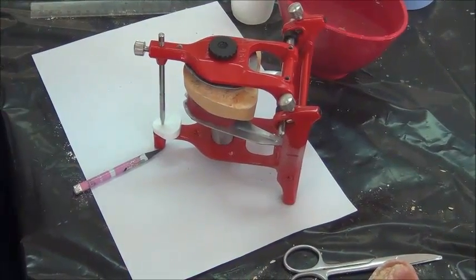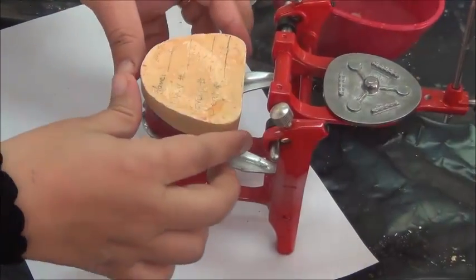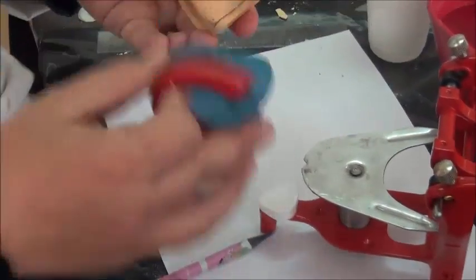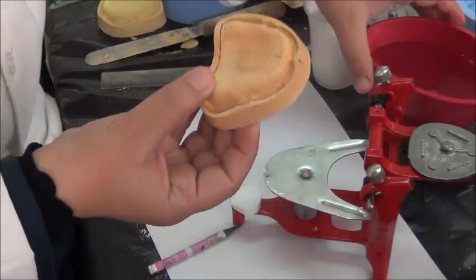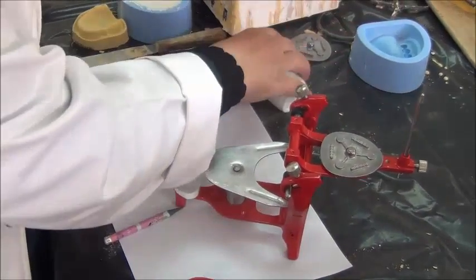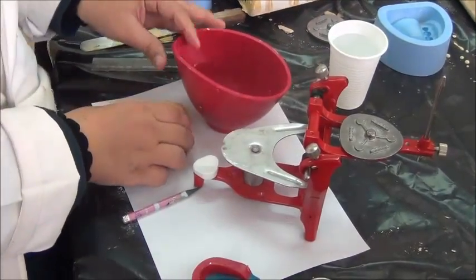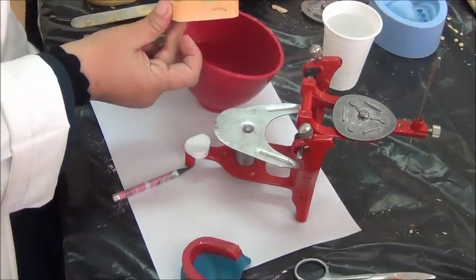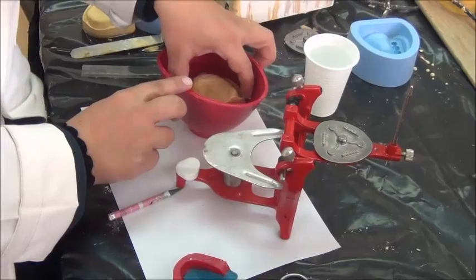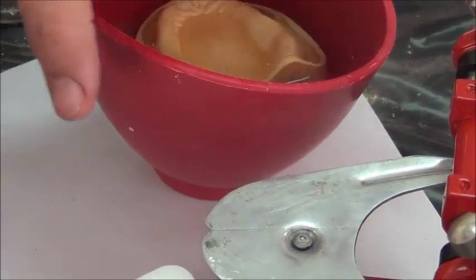So in preparation for the mounting, first of all, we take out the cast, take away the base plate, and just soak the art part of it. The art part is not the anatomical part. The art part is the part around the base. It's just for the purpose of design. So we're going to soak this side into the water. Try to avoid having the anatomical surface included in the soaking.